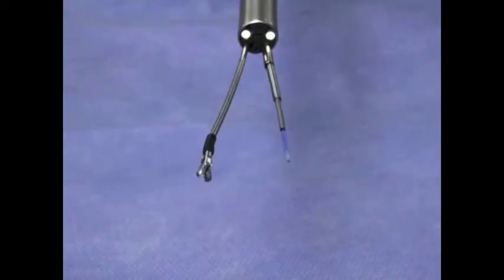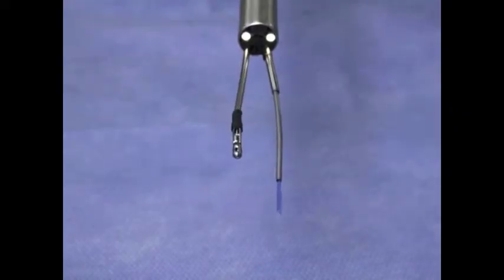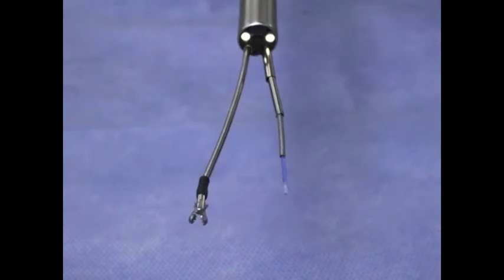In the med lab, we have developed a robot that delivers two concentric tube robotic arms endoscopically for BPH laser surgery.